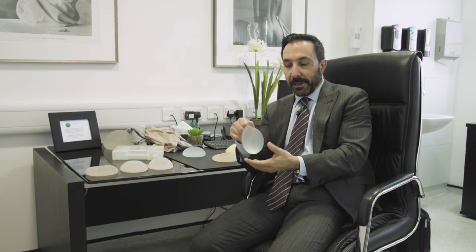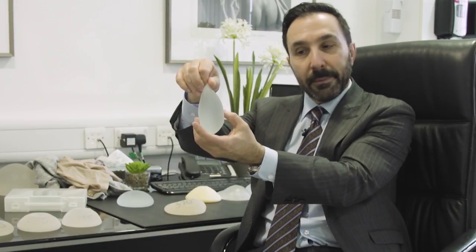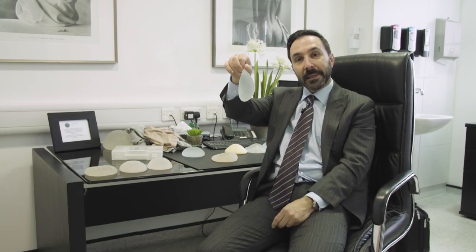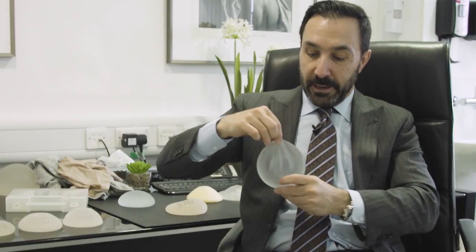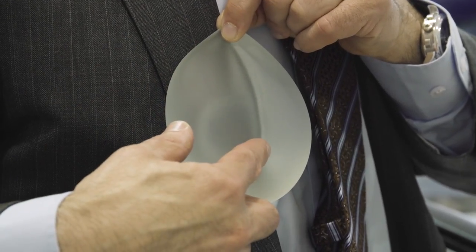Traditionally everybody thought we want to avoid the round stuck-on look. When you lift up a round implant, gravity tends to take effect on it, and what happens is the bottom end of the implant falls down and the upper bit empties out a little bit, thereby giving you a slight teardrop effect. That's what gives a breast implant its natural look, because if I lay this on my chest, because of gravity it's going to fall down into a teardrop effect.